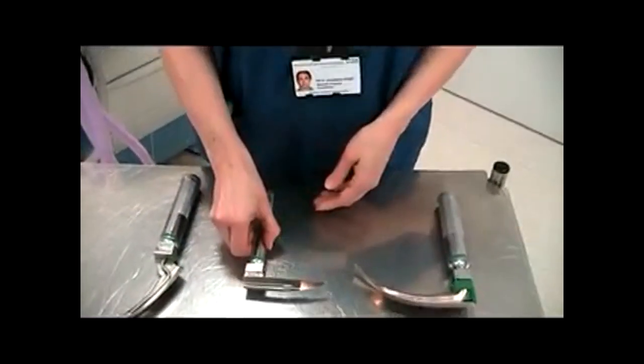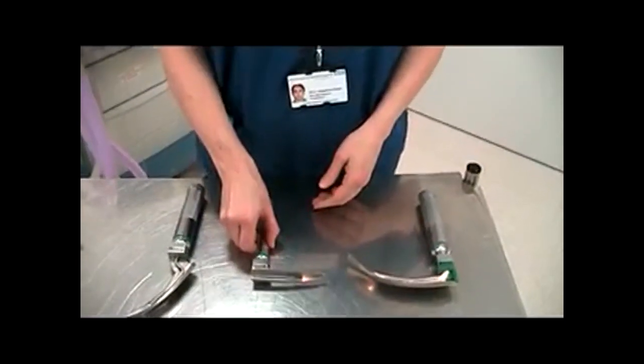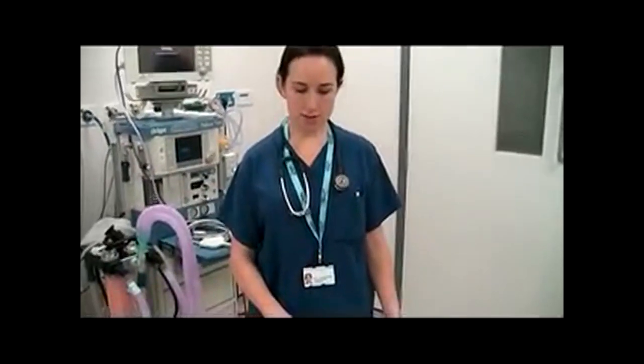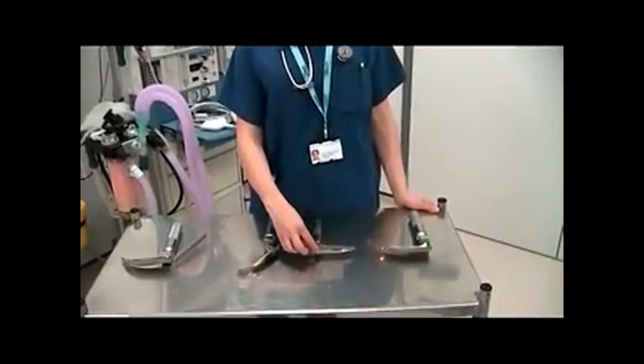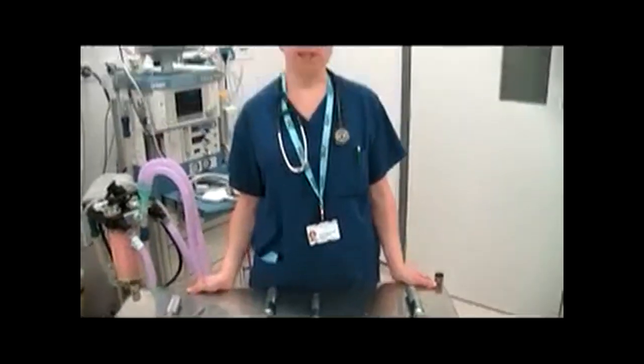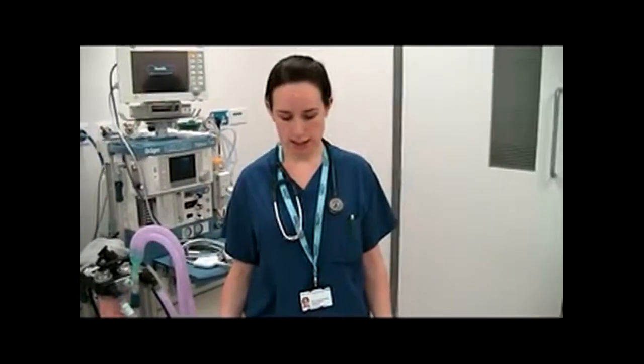What are the features of a modern laryngoscope? A modern laryngoscope contains a disposable blade, it has a handle, a fibre optic bundle, and may contain xenon gas as a light source to give a brighter light.